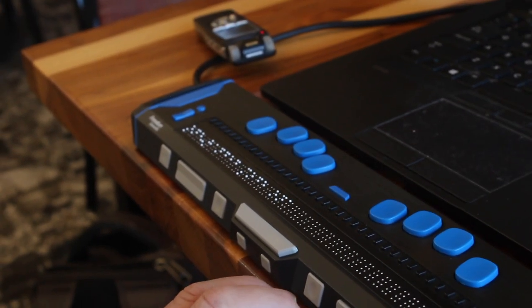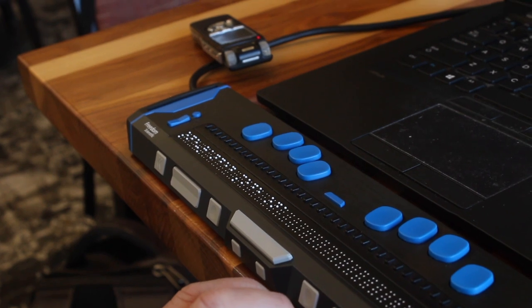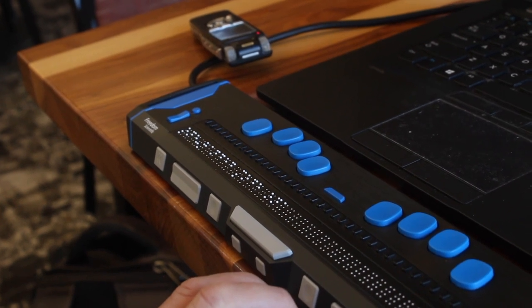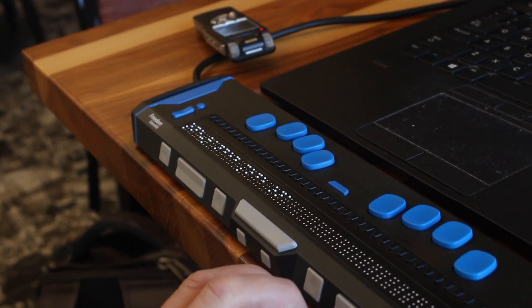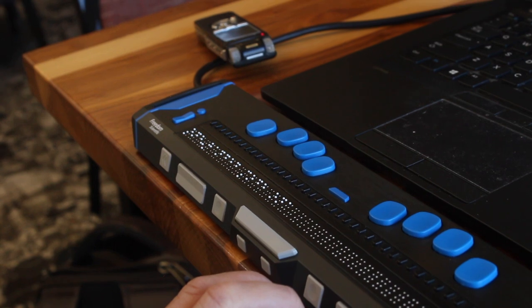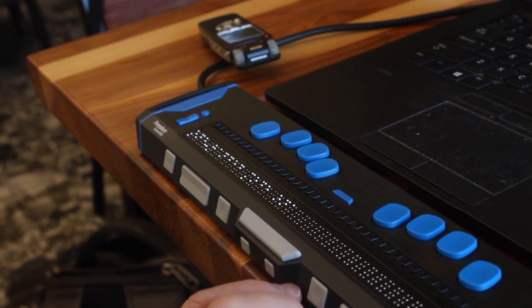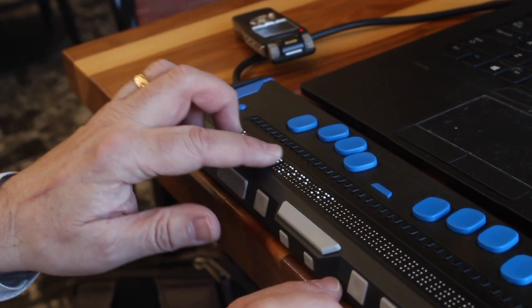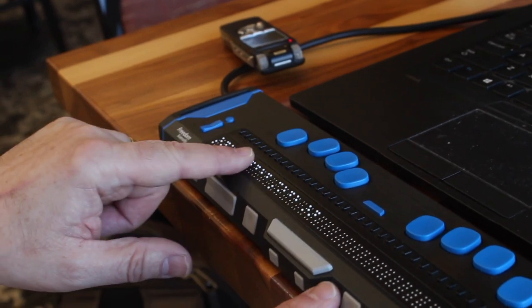Just so you remember, don't press the left selector button unless you wish to escape from that without saving any changes. Left selector takes you back and out.